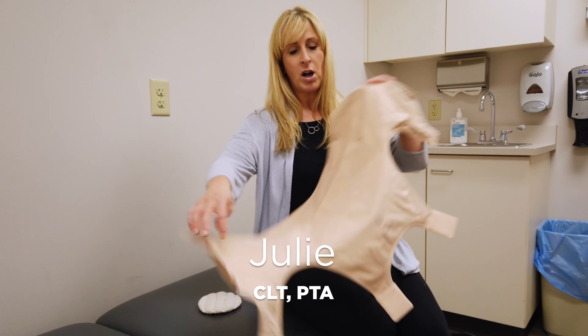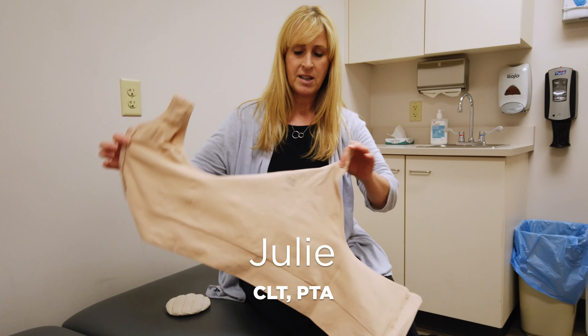One of the things I really love about these prairie bras is that not only do they provide compression independently without any other assistance and they fit really well, but when you have a client who has some excessive swelling — whether it's in the breast, around the trunk, sometimes in the shoulder blade — we have what are called swell spots. These bras are made so that you can place a swell spot right inside this pocket. It goes in easily and it's movable, so it's custom in that wherever your client has swelling, this fits. Right here I'm using it for the breast, but I could move this piece all the way back, because this is all an open space that allows me to provide whatever kind of compression in whatever area my patient needs it.